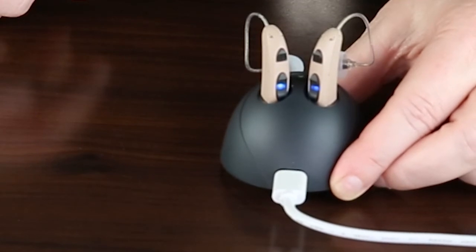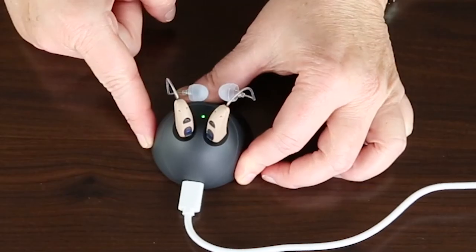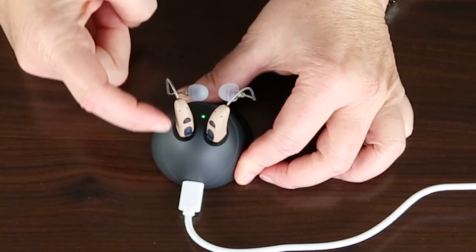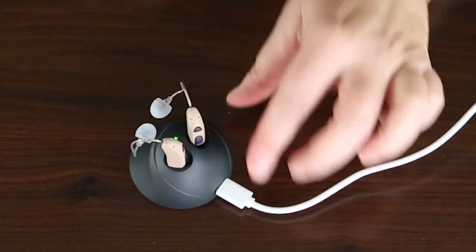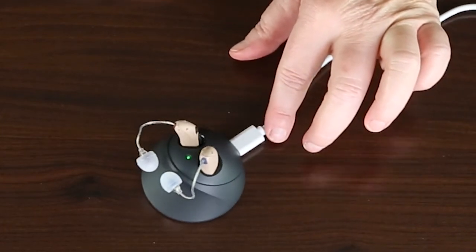Once this blue light on the hearing aids turns green, green means you're good to go. This will now complete your charging for the hearing aids.